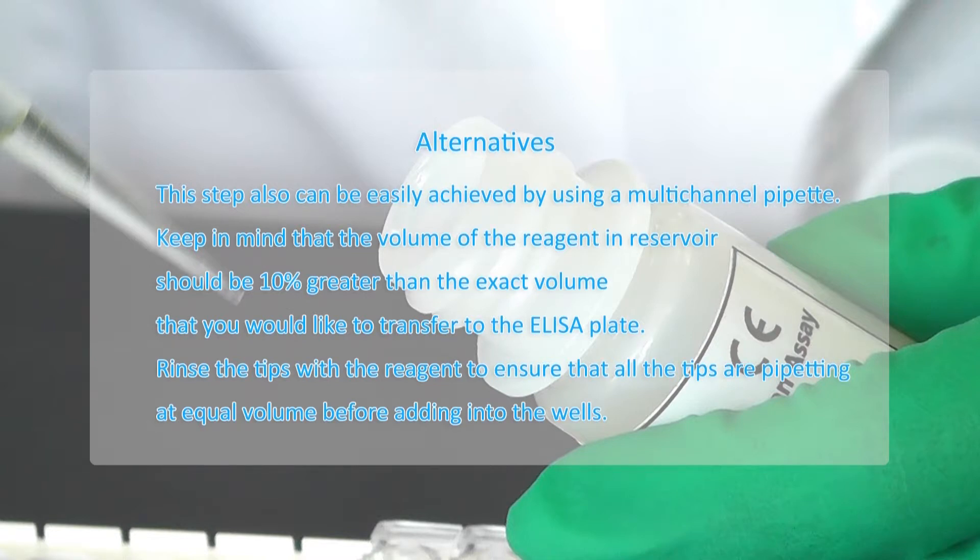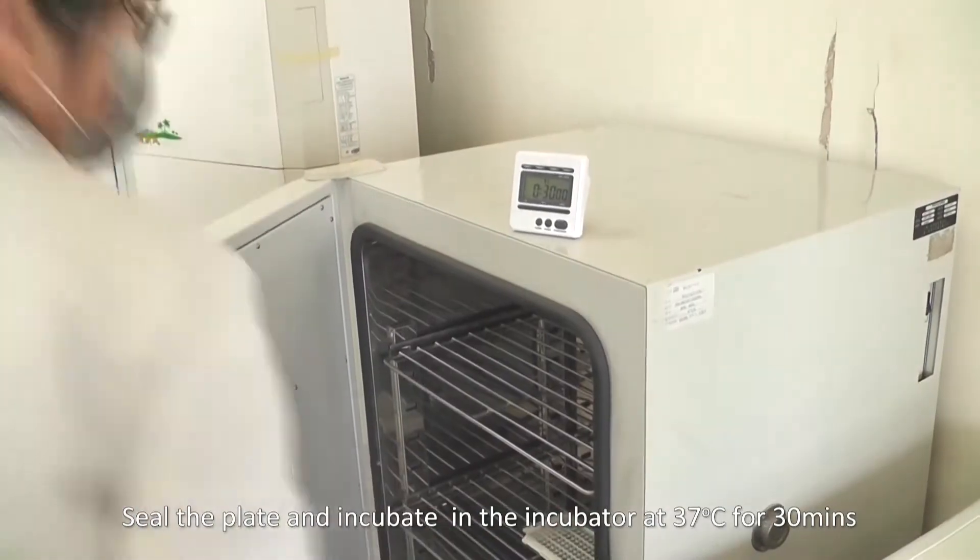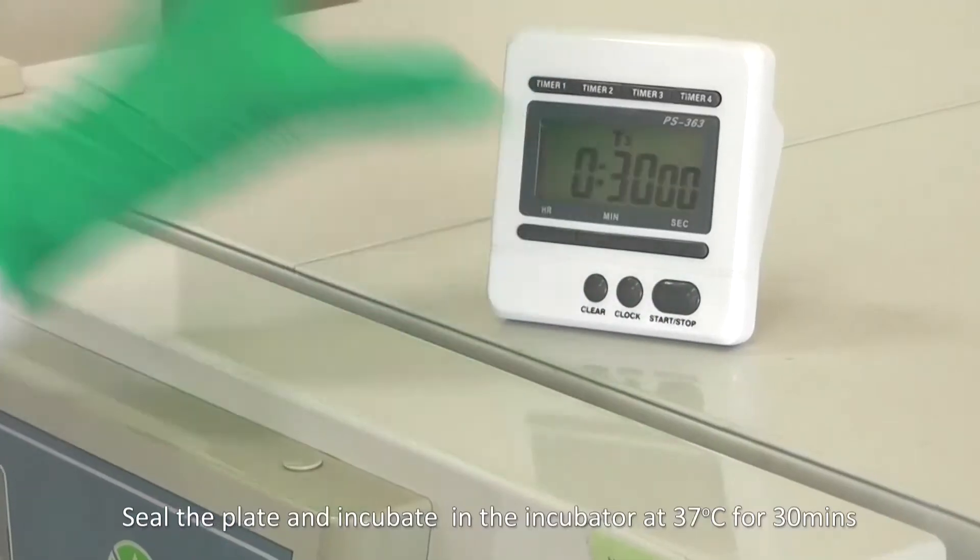Rinse the tips with the reagent to ensure that all the tips are pipetting at equal volume before adding into the wells. Seal the plate and incubate in the incubator at 37 Celsius for 30 minutes.